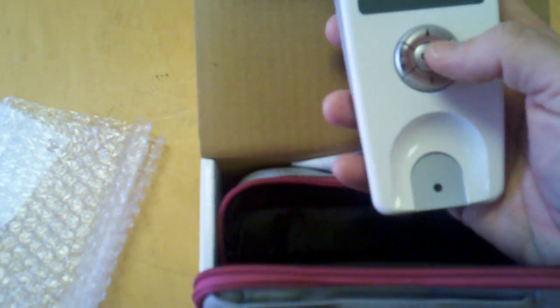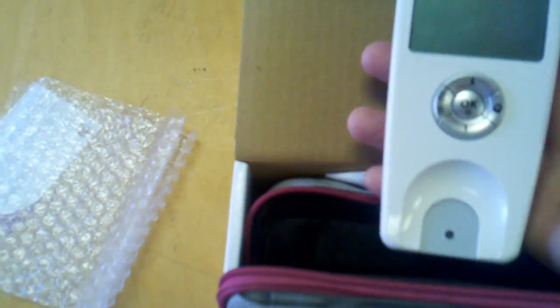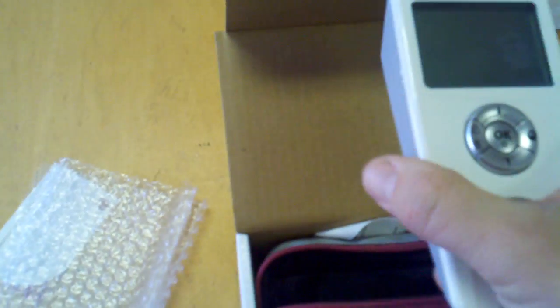Basically, all you have to do is turn it on. I don't have it plugged in right now because I just took it out of the case, and I'm just showing you what you get. It does have the cord to plug in. We also provide the docking system, which is a separate purchased item from GoSouthernMD. This is where it will plug into the printer, and you can also dock it into your computer so you can email the doctor your results.